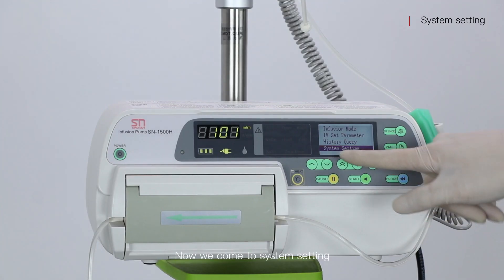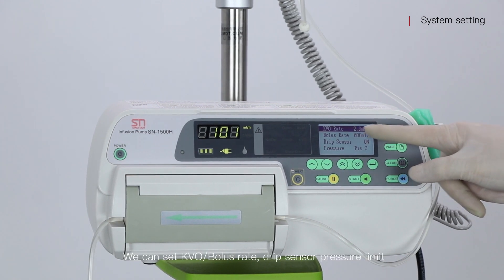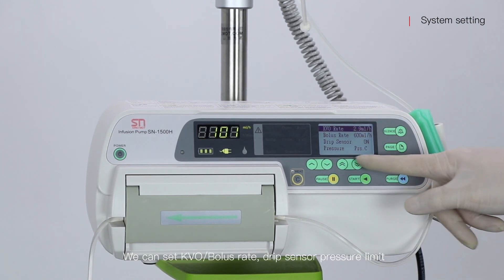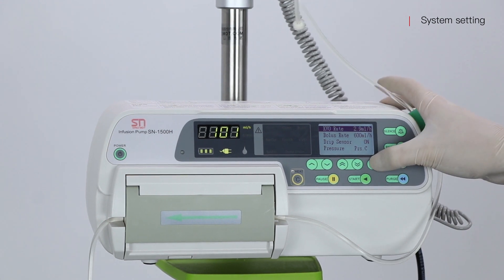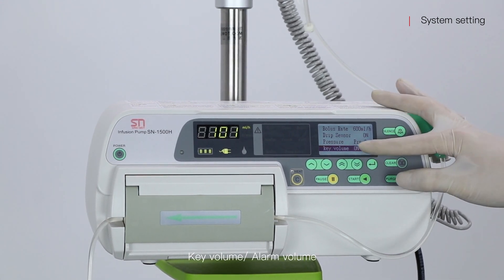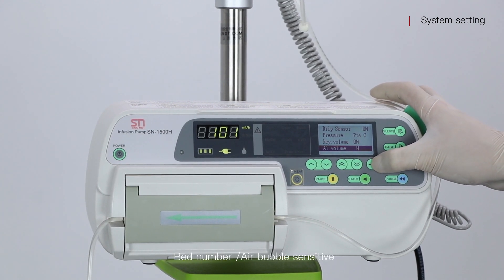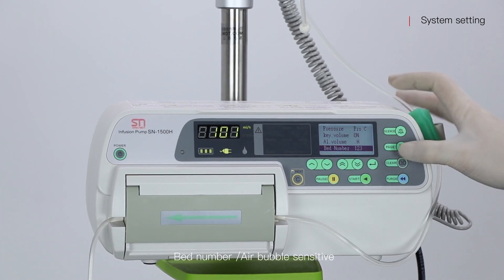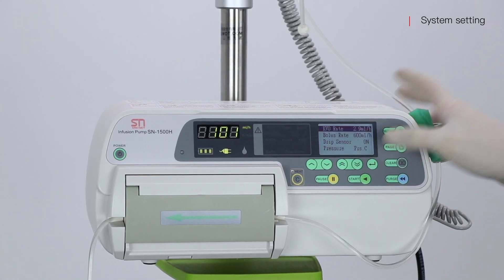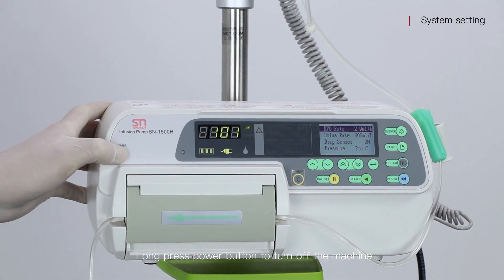Now we come to System Setting. We can set KVO rate, bolus rate, drip sensor, pressure limit, key volume, alarm volume, bed number, and air bubble sensitivity. Long press the power button to turn off the machine.